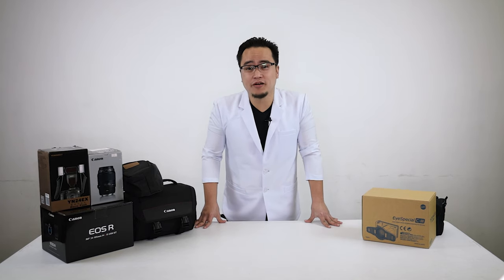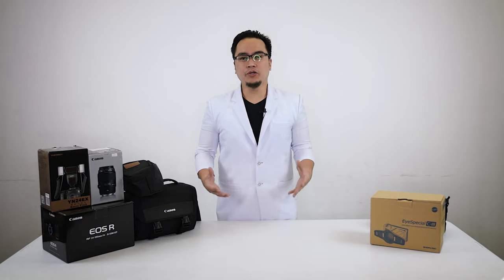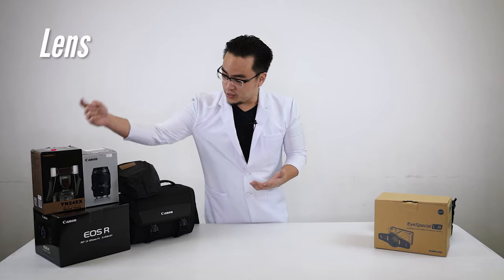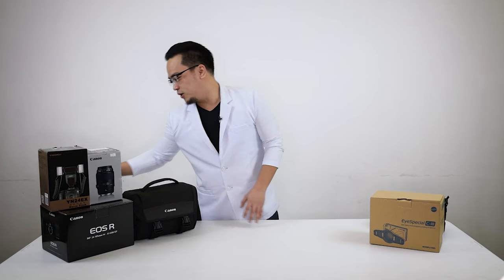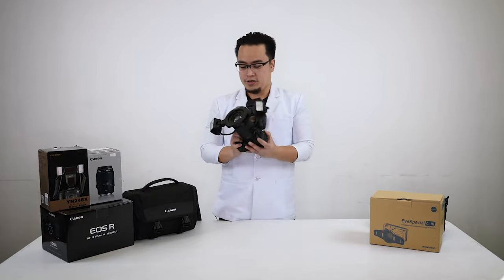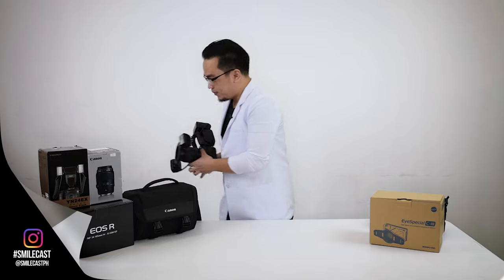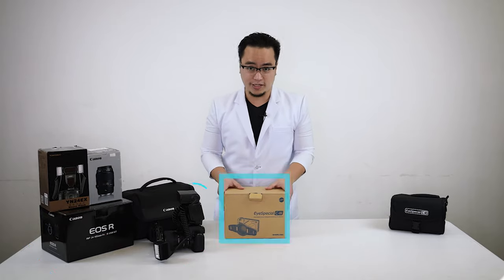How many boxes does it take to complete your dental photography kit? The Shofu C3 comes in one box. Usually when you build your own dental camera kit, you need a few things: first your lens, your flash, and of course the camera itself — which usually ends up looking something like this. Anyone who takes a first look at it will be completely overwhelmed by the amount of things attached together and all the buttons it comes with. In this video we're going to show you a camera set for dental photography that has all of that packed into this little box.